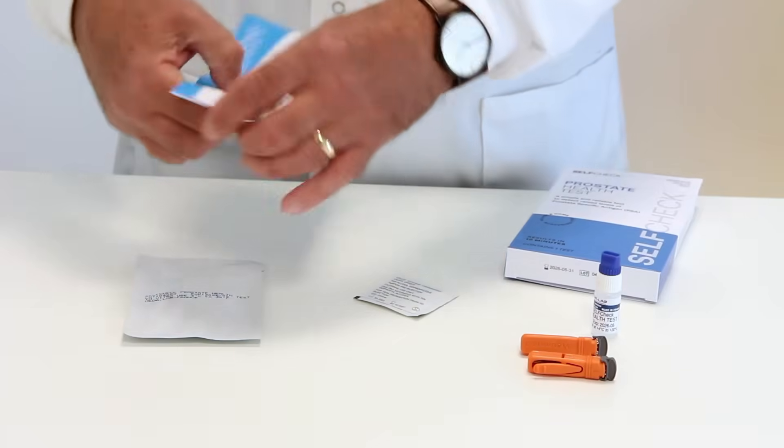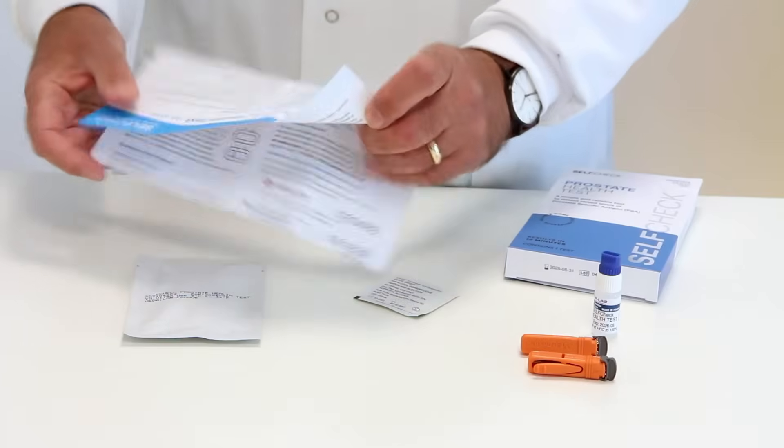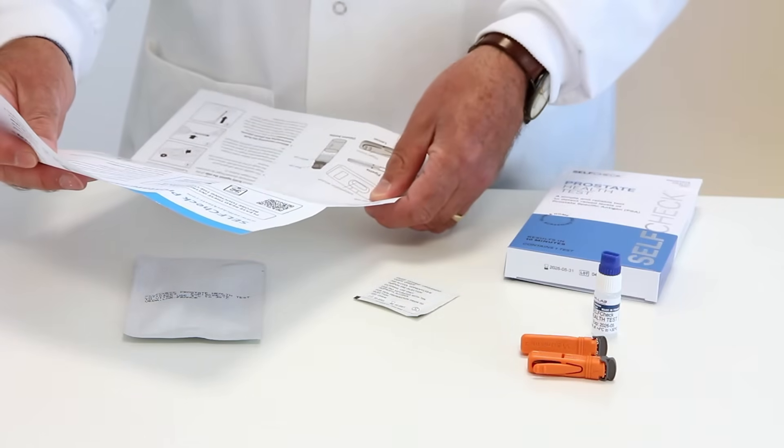Before you start the test or touch the components, it is very important that you carefully read both sides of the instruction leaflet.